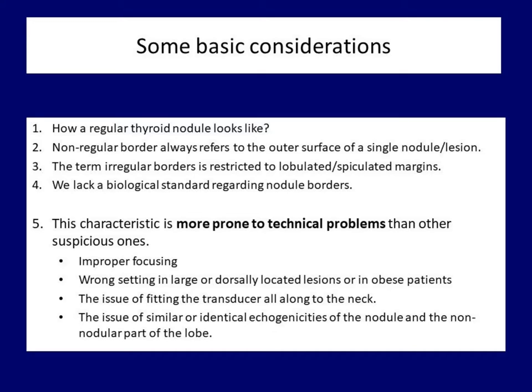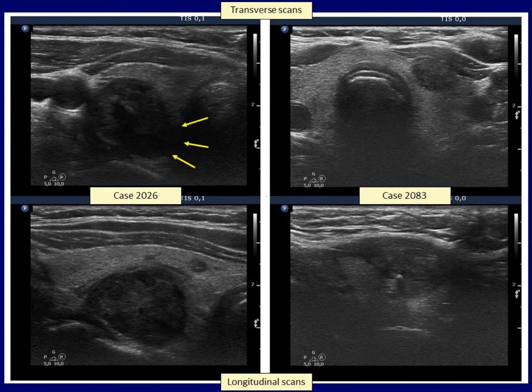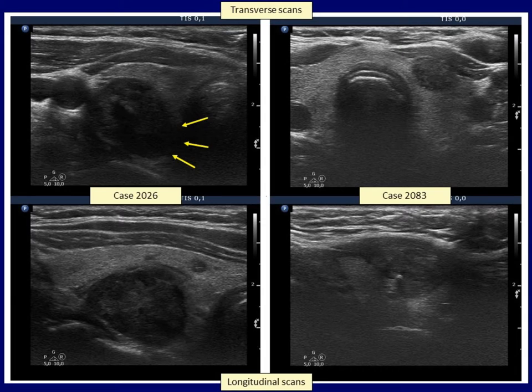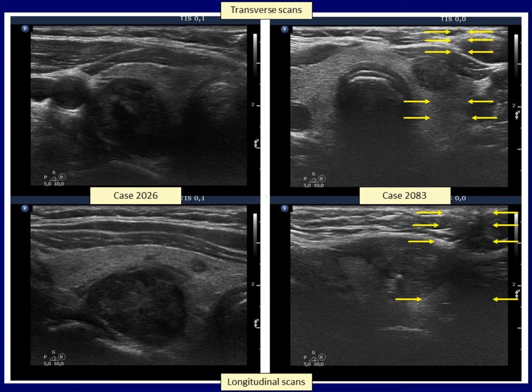Another unavoidable issue is that it is not always possible to fit the probe all along to the neck of the patient. In nodules whose echogenicity is very similar or identical to the neighboring non-nodule tissue, the nodule borders can also be indistinctive. The medial part of the left nodule is blurred on transverse scan because of improper fitting of the transducer to the neck; on longitudinal section, the borders are sharp. Simply because of the anatomy, the probe can be fit easier to the neck on longitudinal scan than on transverse section. In the right case, the lateral and the lower parts are not clearly demarcated. Note the dark field starting ventral to the thyroid because of improper fitting of the transducer — so in this case, the indistinctive margins are caused not by pathology but by technical reasons.